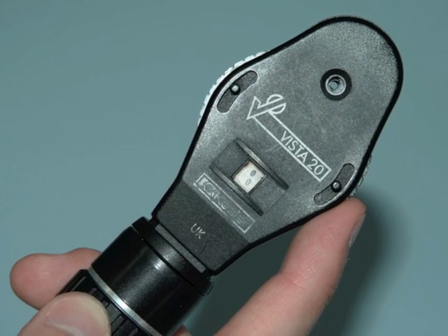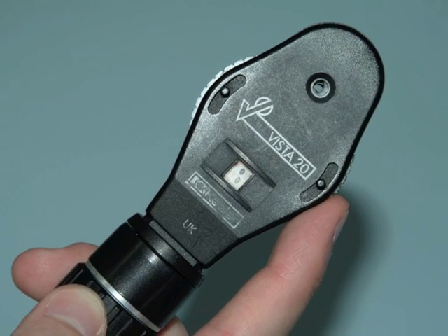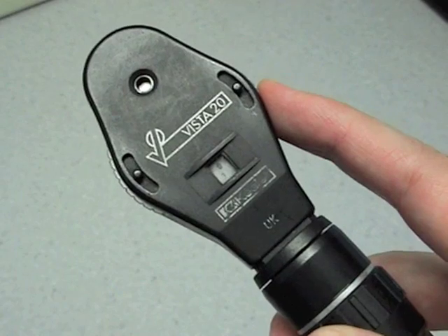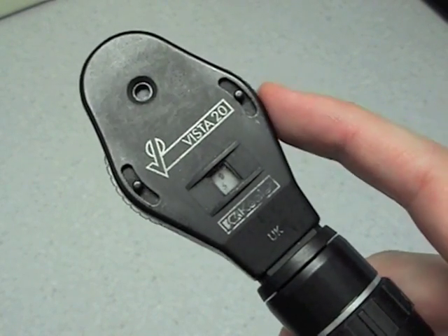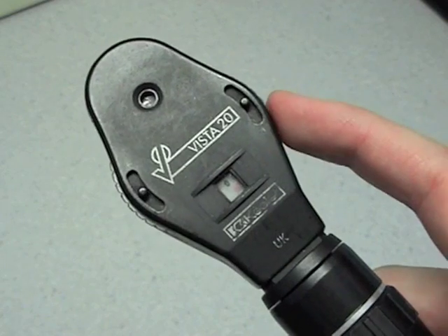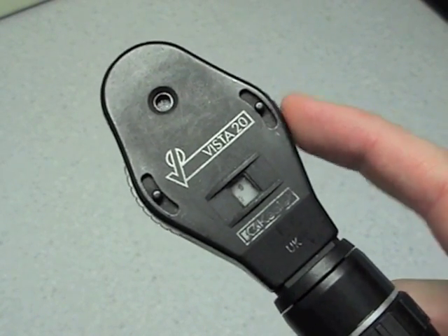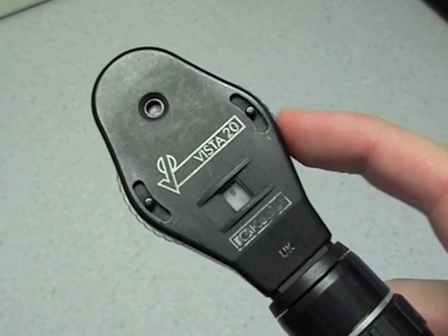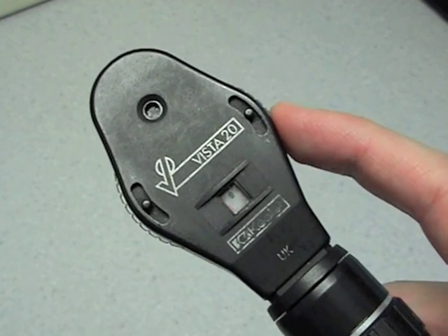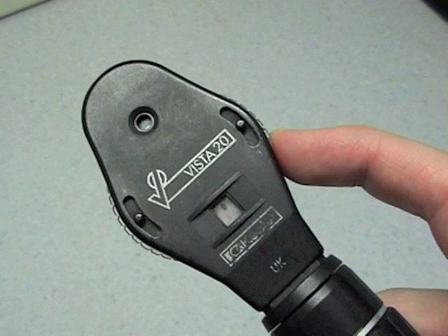The dials on the side of the head select the strength of the lens being used to view the fundus. Plus lenses are usually green, yellow, or black and are dialed clockwise, with minus lenses most often being red and dialed anti-clockwise. This is used to bring various structures into focus whilst examining the eye and also compensates for the refractive error in both the patient and the examiner. For example, if the observer has no refractive error but the patient is myopic or short-sighted, then minus lenses would be required to bring the fundus into focus.